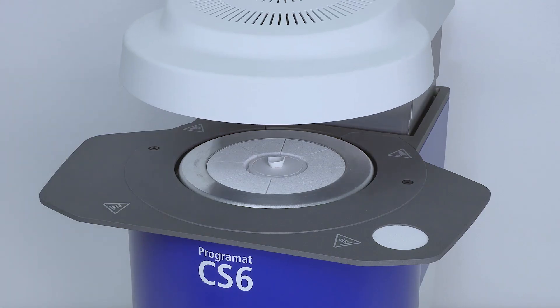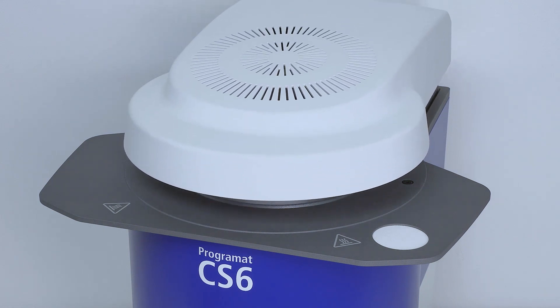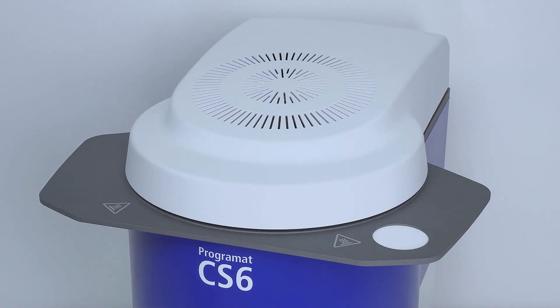Proprietary vacuum technology accelerates the sintering process while simultaneously improving the aesthetics of your zirconia restorations. Zirconium oxide exhibits a certain porosity. The pores contain air. During the sintering process in the PROGRAMAT CS6, the pores get smaller, the pressure increases.